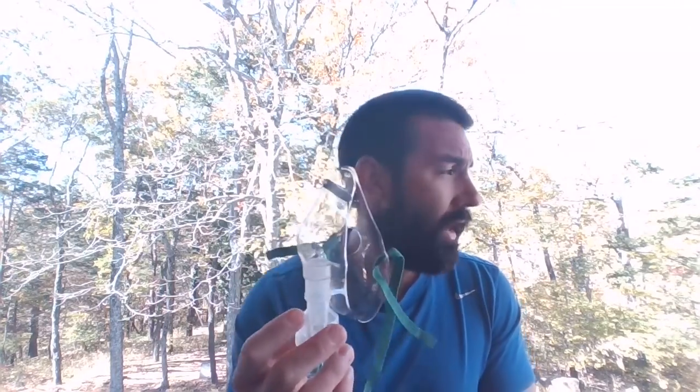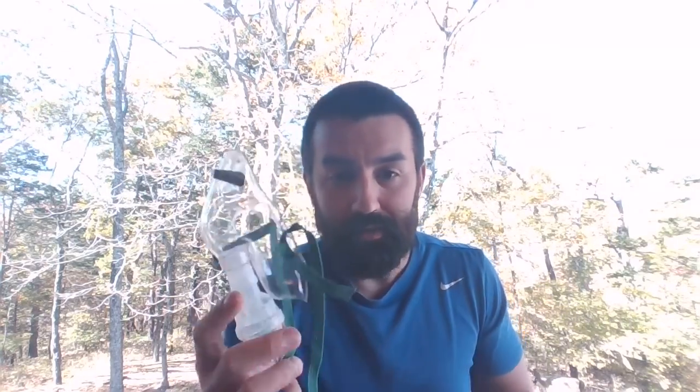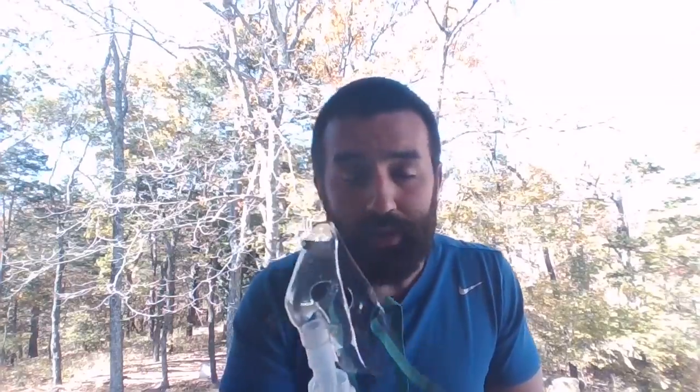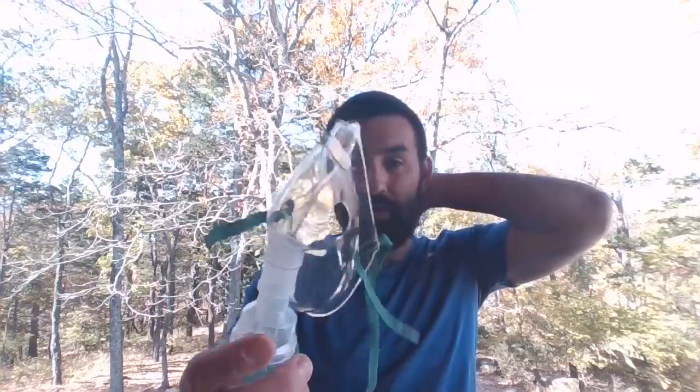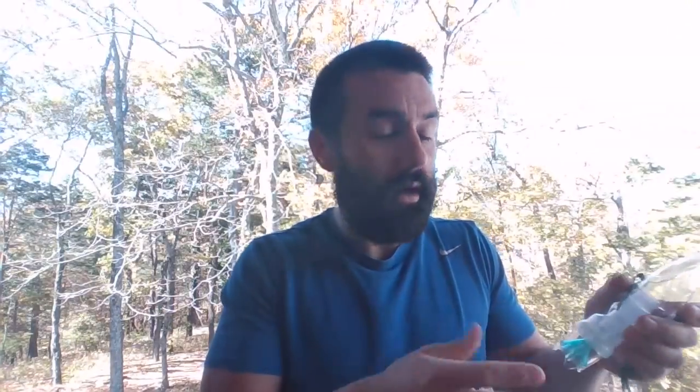As far as oxygen, we're giving these with oxygen. It should meet a majority of your patient's FiO2 needs. A lot of times their oxygen saturation goes up, not because of this medicine, it's because we're running with 8 liters of O2. We don't really know what they're getting, but a lot of times you'll see there's probably 40, 50, 60% FiO2, probably closer to 40 to 50. So that is not the medicine working. That is the extra oxygen there. We're not running this as high flow, but it does give them a decent FiO2 if you're running this on medical oxygen. So that's running with an aerosol mask.